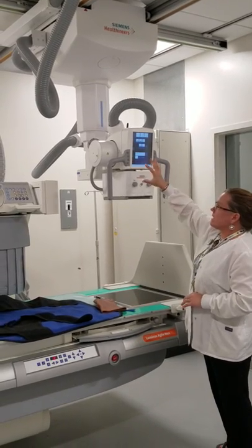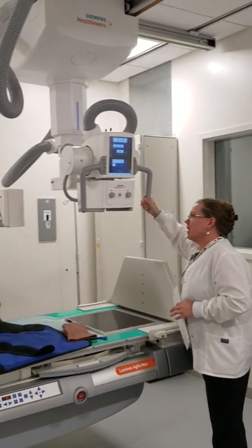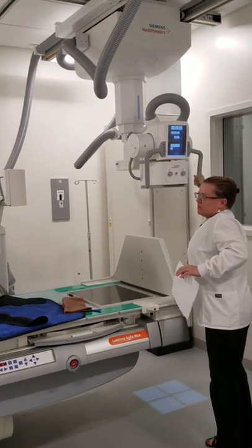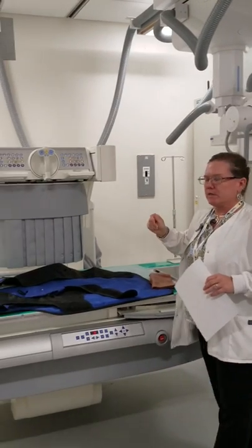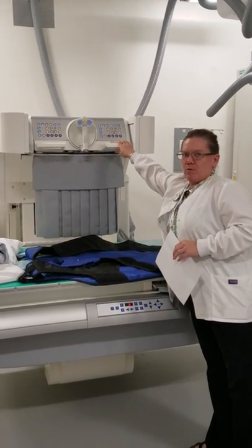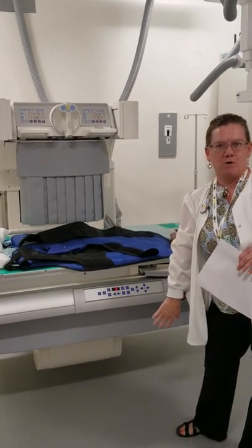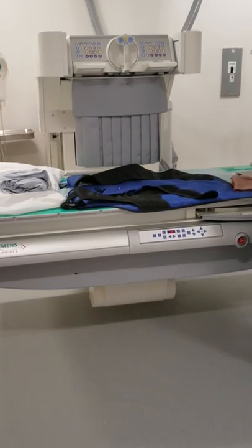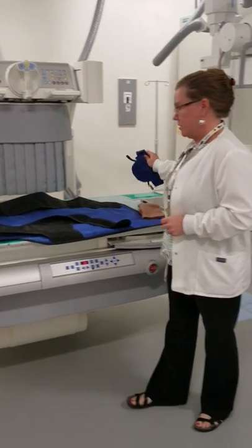The overhead tube actually has a cathode and anode inside it. If we're doing a fluoroscopy exam — which uses a continuous x-ray beam operated by a radiologist while taking images — we'll be using this camera, which comes across the table to take images near and underneath the table.